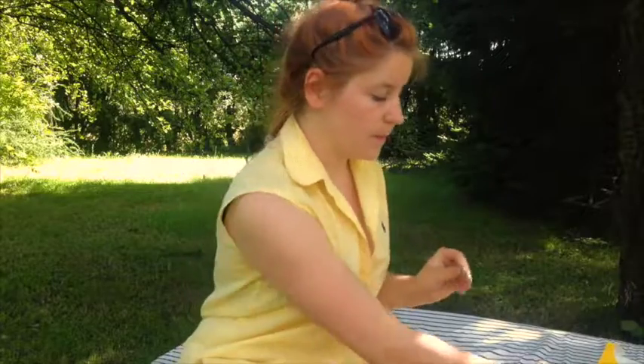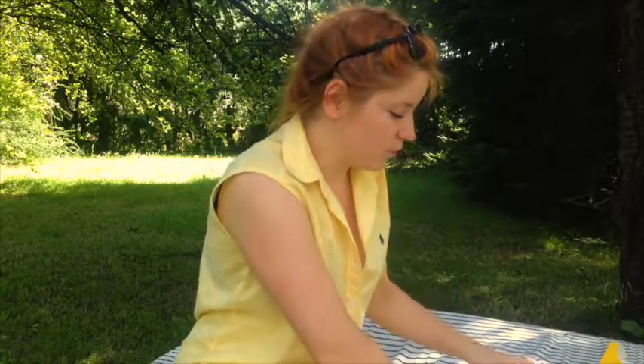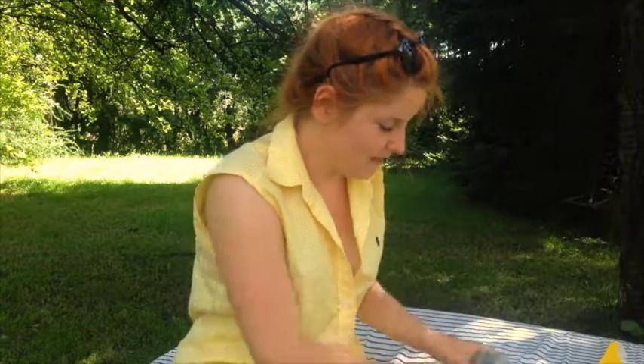Generalnie nie musi być to zawsze ramię, chociaż producent zaleca je jako miejsce, które najmniej może ulec uszkodzeniom — wszelkiego typu pociągnięciom, szarpnięciom i wszystkim innym. Jak widzieliście, przeczyściłam moje miejsce i teraz należy odkleić folię.